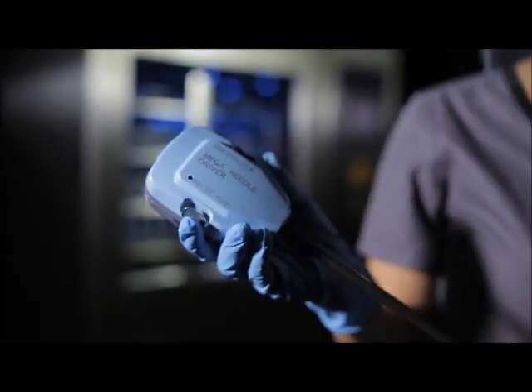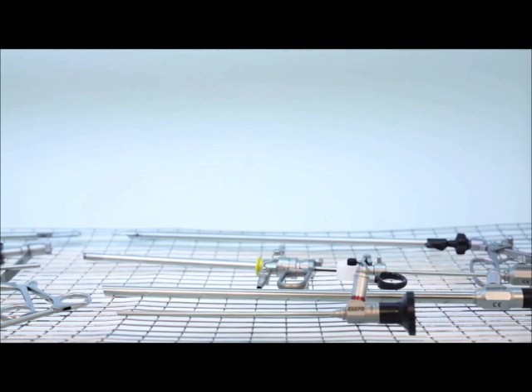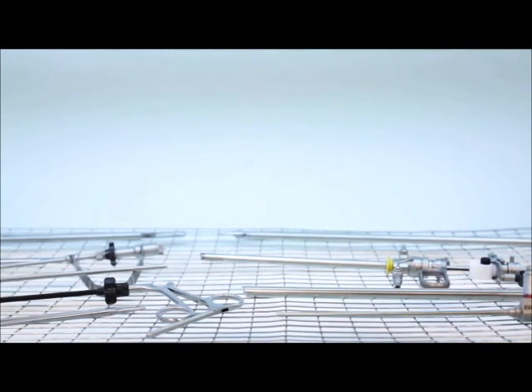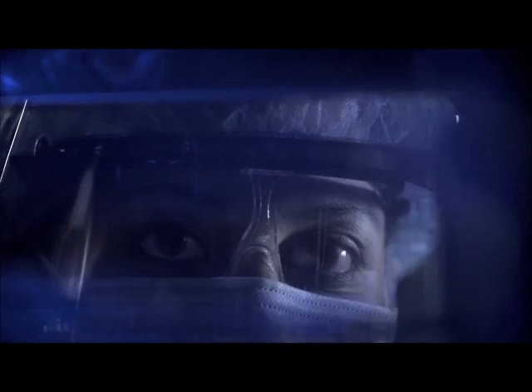To meet the growing demands of today's sterile processing environment, see the future with MediSafe.